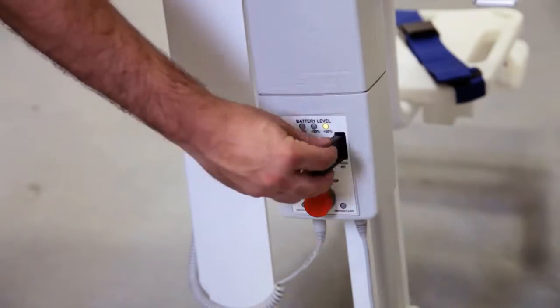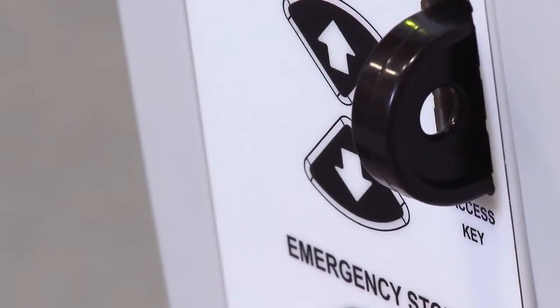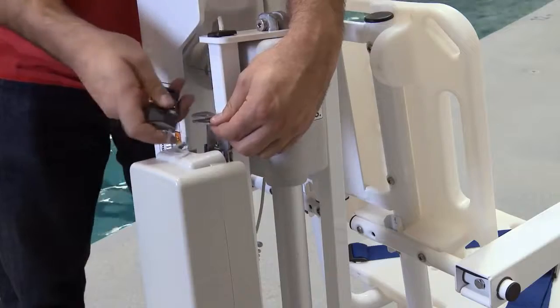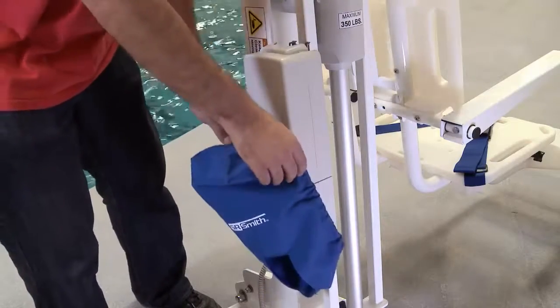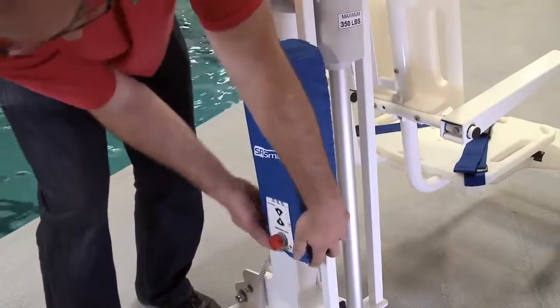The lift operator can be purchased with an optional activation key feature that prevents unauthorized use of the lift in unattended facilities. The battery pack can be secured to the mounting plate using the lock plate assembly and securing with the padlock. The optional console battery cover prevents moisture from collecting on the control box and battery.